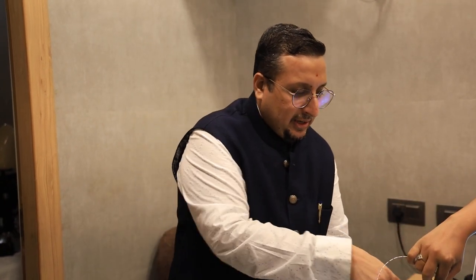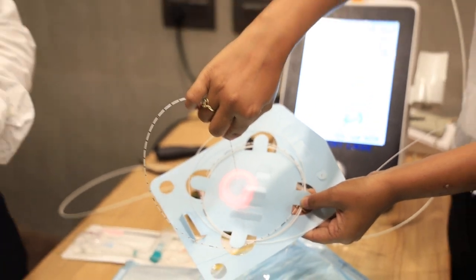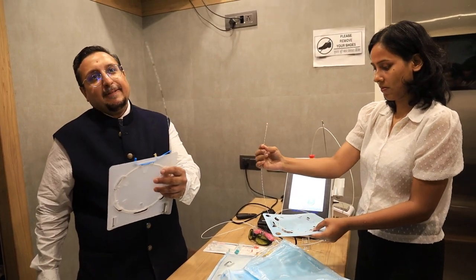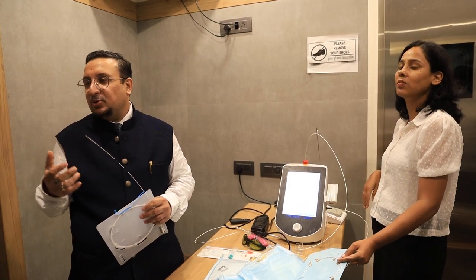This is 360 degree emission. And the bare fiber was V-shaped — it was not 360 degree, it was straight. The disadvantage of the radial fiber for surgeons is it cannot be cut and reused; ideally they say 5 to 10 cases only. We can use it in more cases but the intensity goes down and we cannot cut it. With the bare fiber, the beauty is that you cut, cut, cut and use it — you can use it for multiple cases.